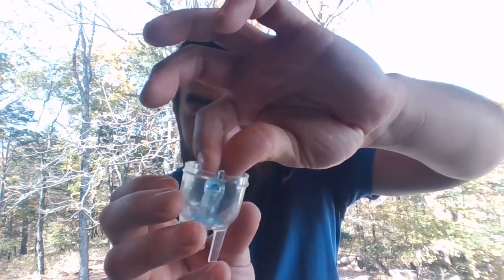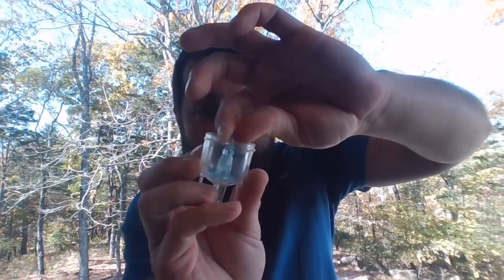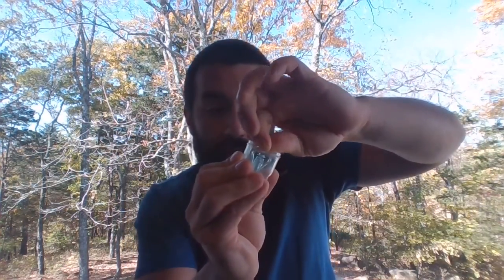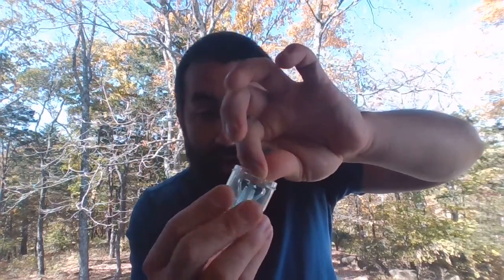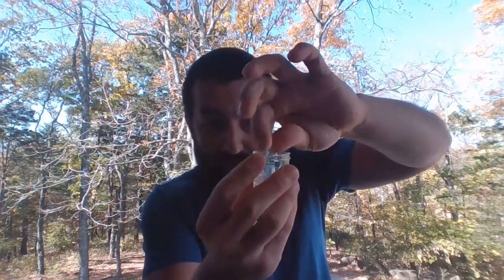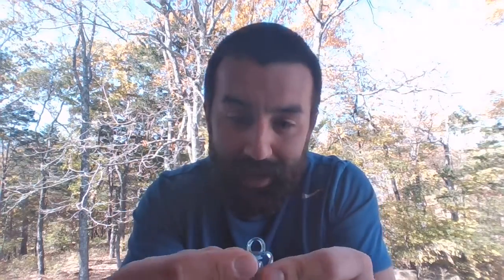So if you look at these closely in class, you'll notice that that little blue spacer is not completely tight on this little centerpiece entirely. There's potential space. That medicine gets drawn up through the sides of this and gets pulled in the gas stream right there. You'll notice as that medicine goes through, there's a giant plastic piece, okay? You might go, well, why would I shoot medicine right at a big plastic piece?